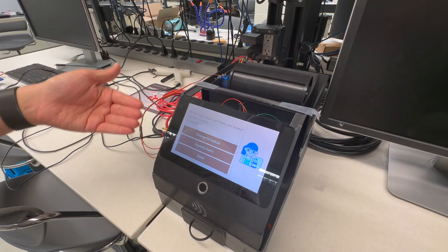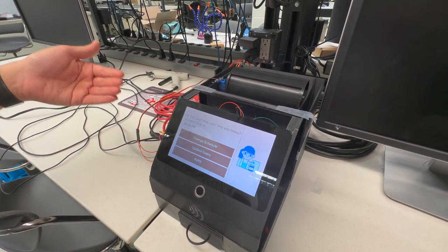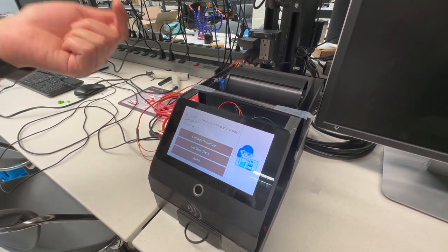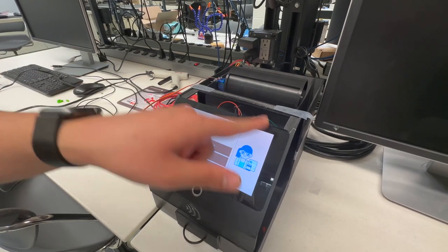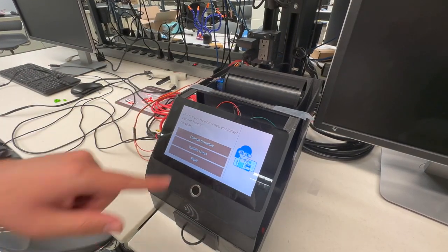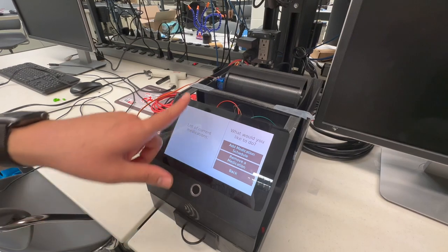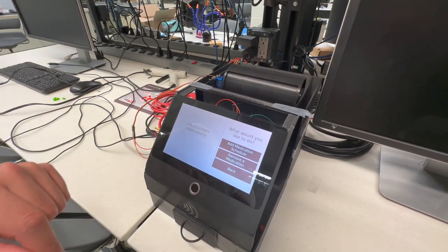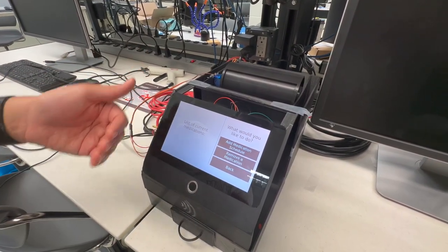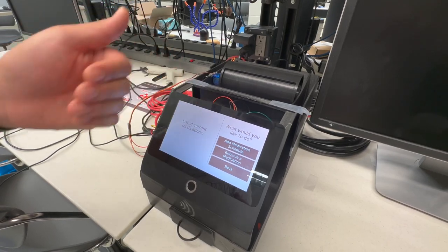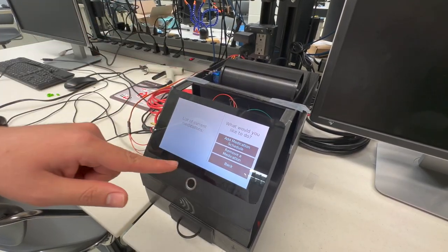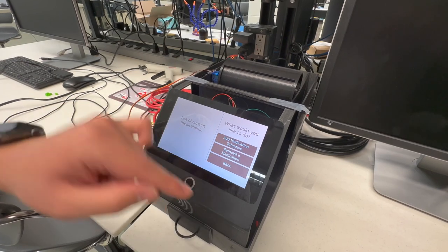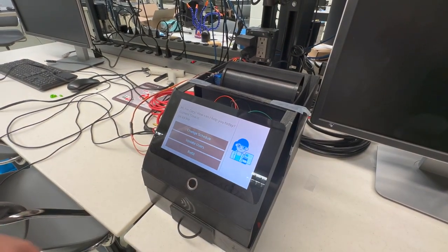In order for the device to know when to give you the adequate medications that you need, it has to know your medication regimen. You can add that from the main screen by going into the change schedule menu. On the left it will show you the current regimen that you have, which in this case is empty. On the right side of the screen you will have three options: add medication, remove medication, or go back to the main menu.